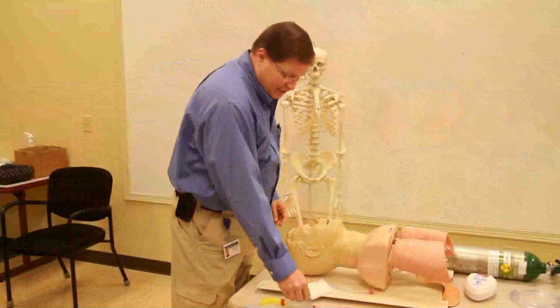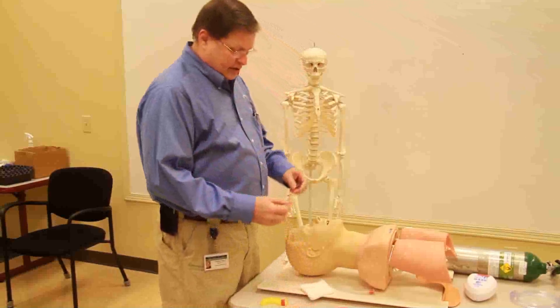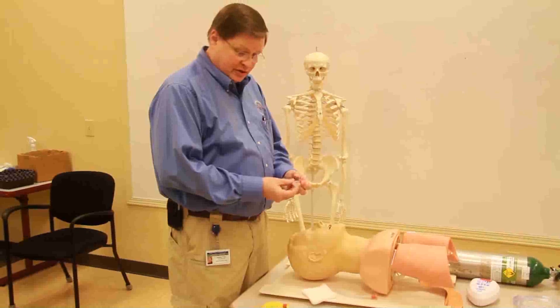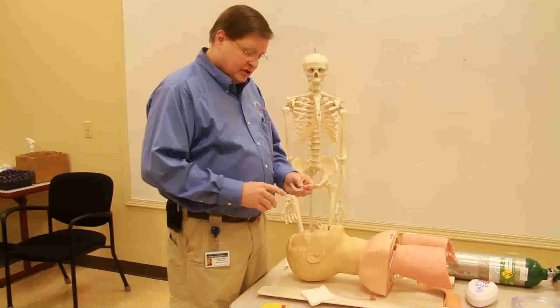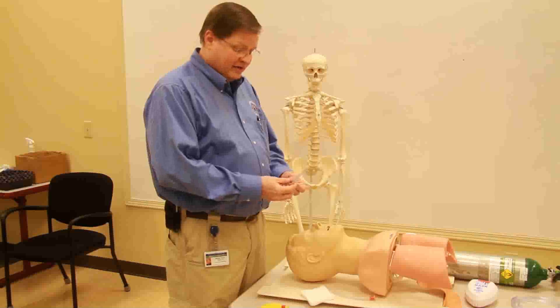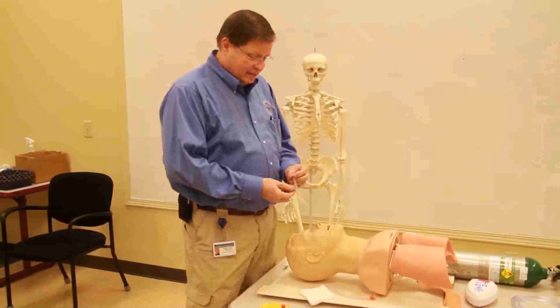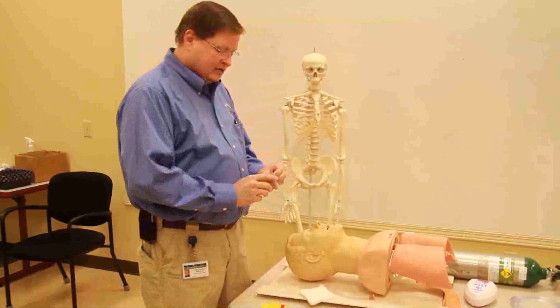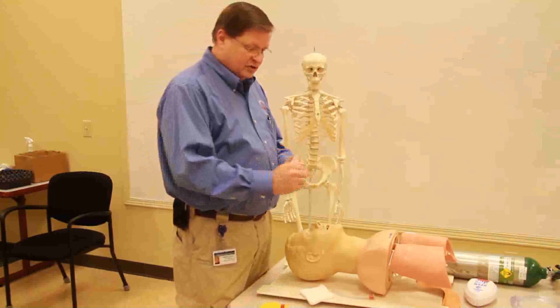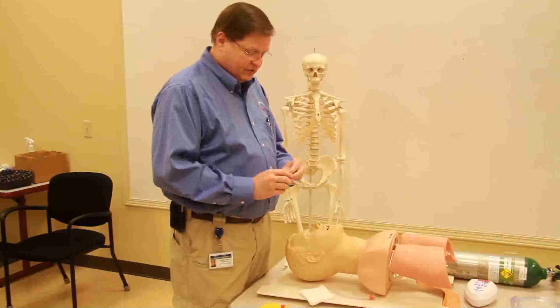We're going to talk about the nasopharyngeal airway now. The nasopharyngeal airway can be used in the conscious patient or semi-conscious patient, and it doesn't stimulate the gag reflex — so they can actually have a gag reflex with this airway. It provides a tube that goes straight down through to the trachea, just landing on this side of the trachea.